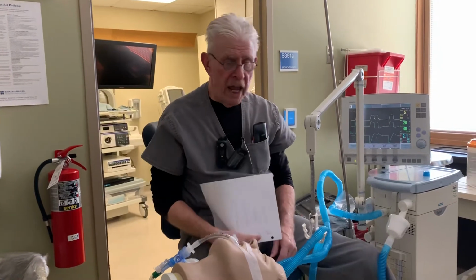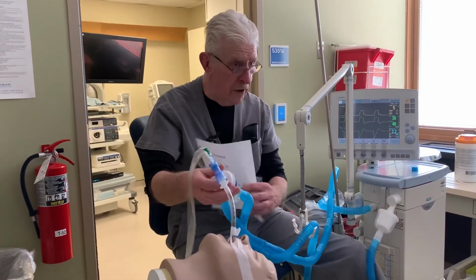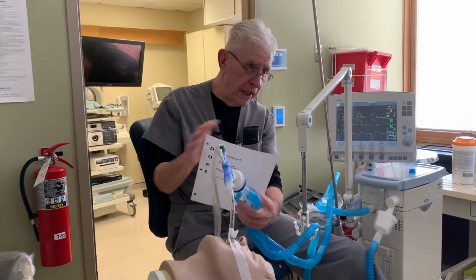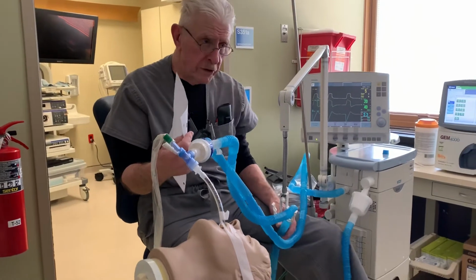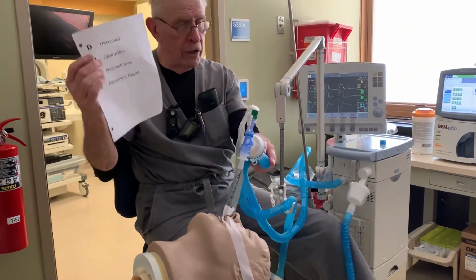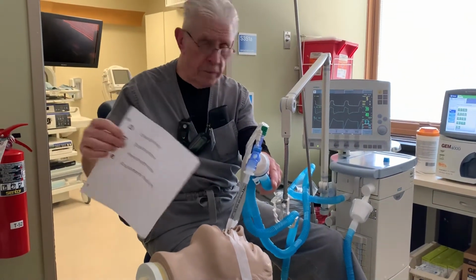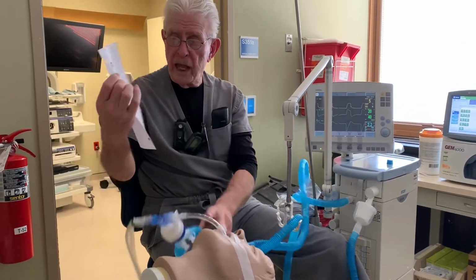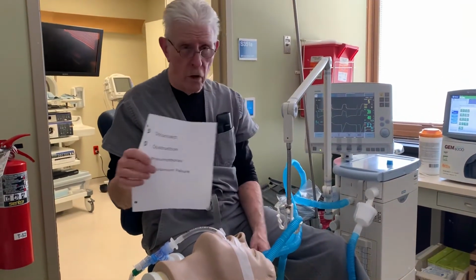Equipment failure: if there is nothing here that can be solved, your respiratory therapist will have to replace this device. It could be something related to the circuit, which is much more common. Or the alarms that you're having could be related more to the patient. They could need to be suctioned. Right? And sometimes it's a matter of the patient becoming more aware of what's going on around them.